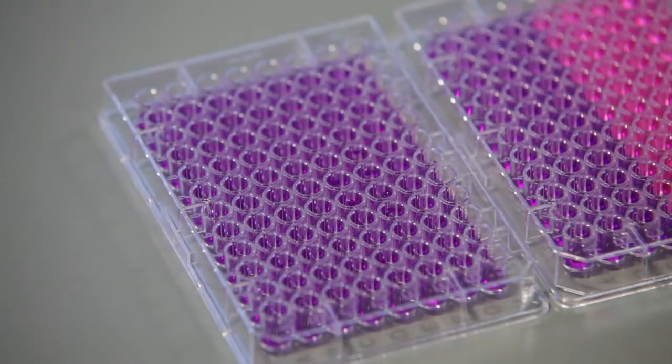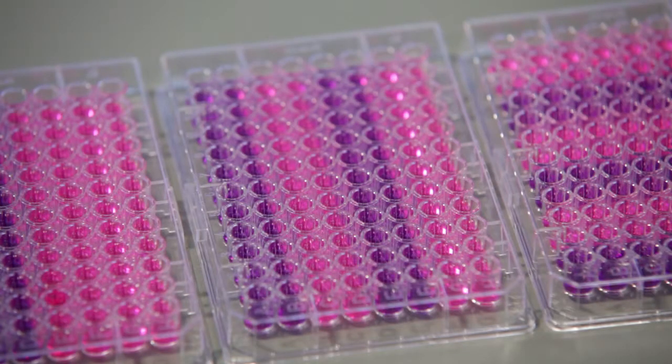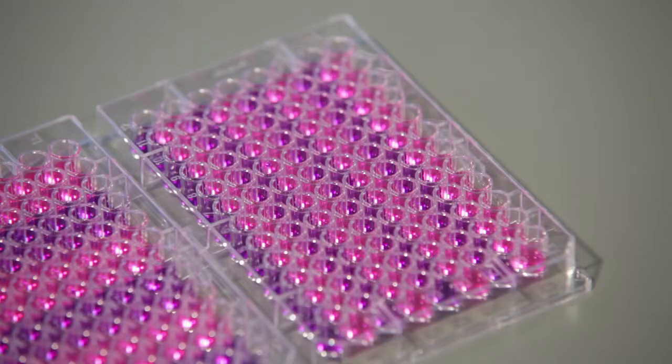Depending on the test configuration of the microplate, the identification of 2 to 8 isolates can be performed simultaneously.